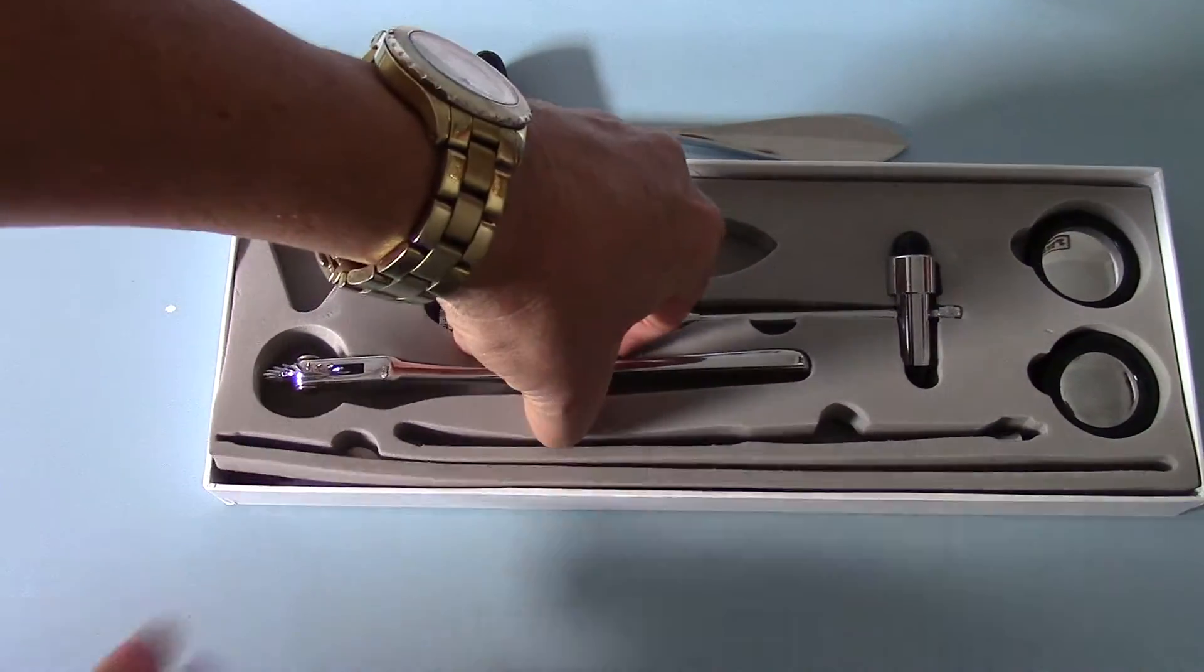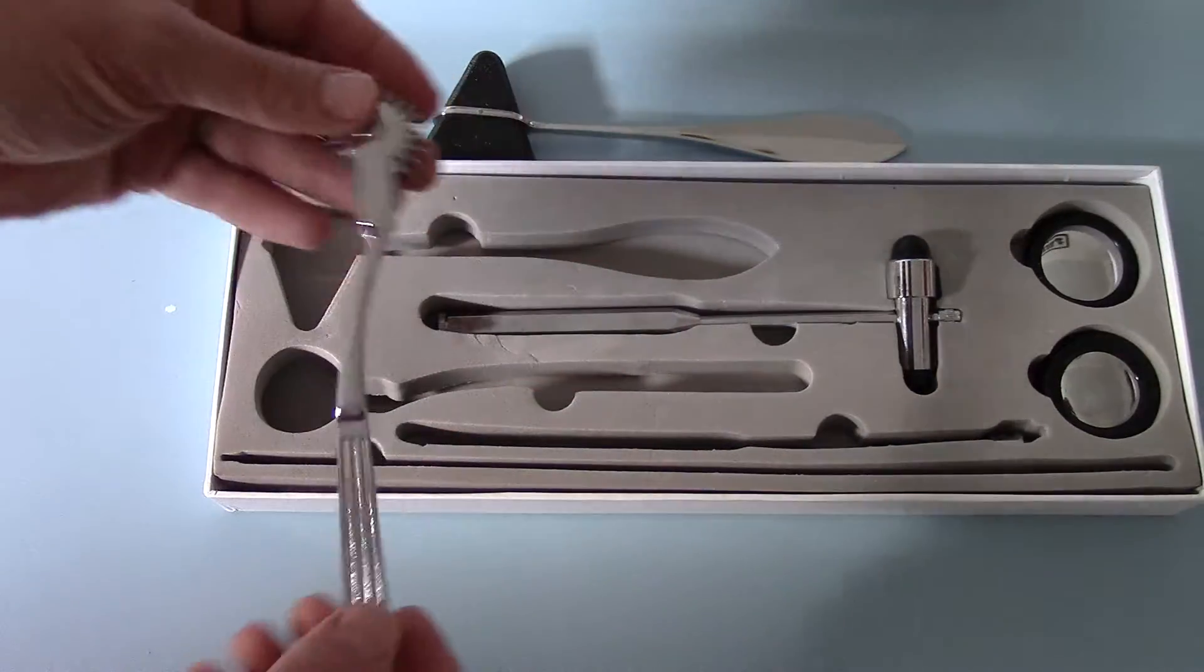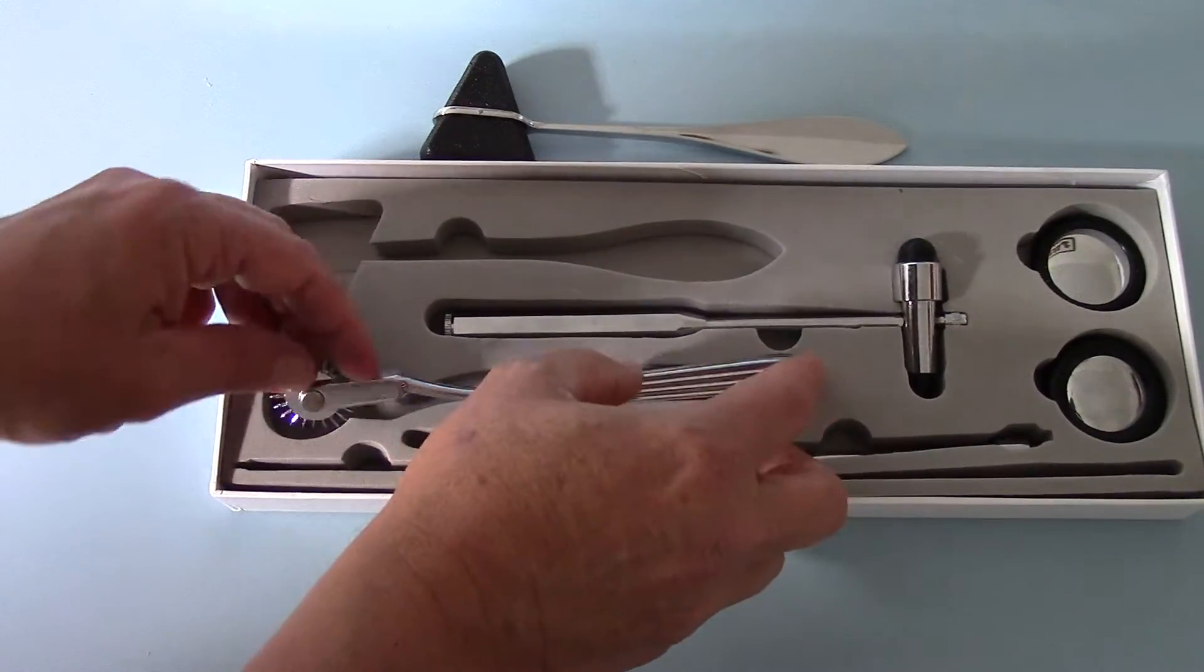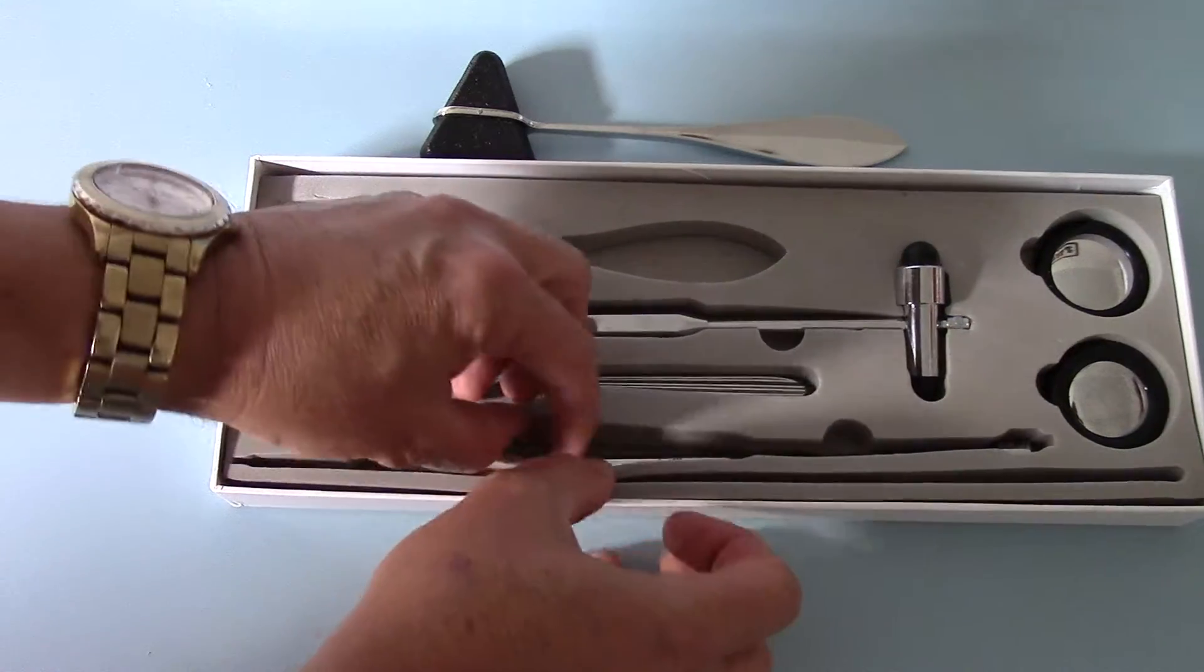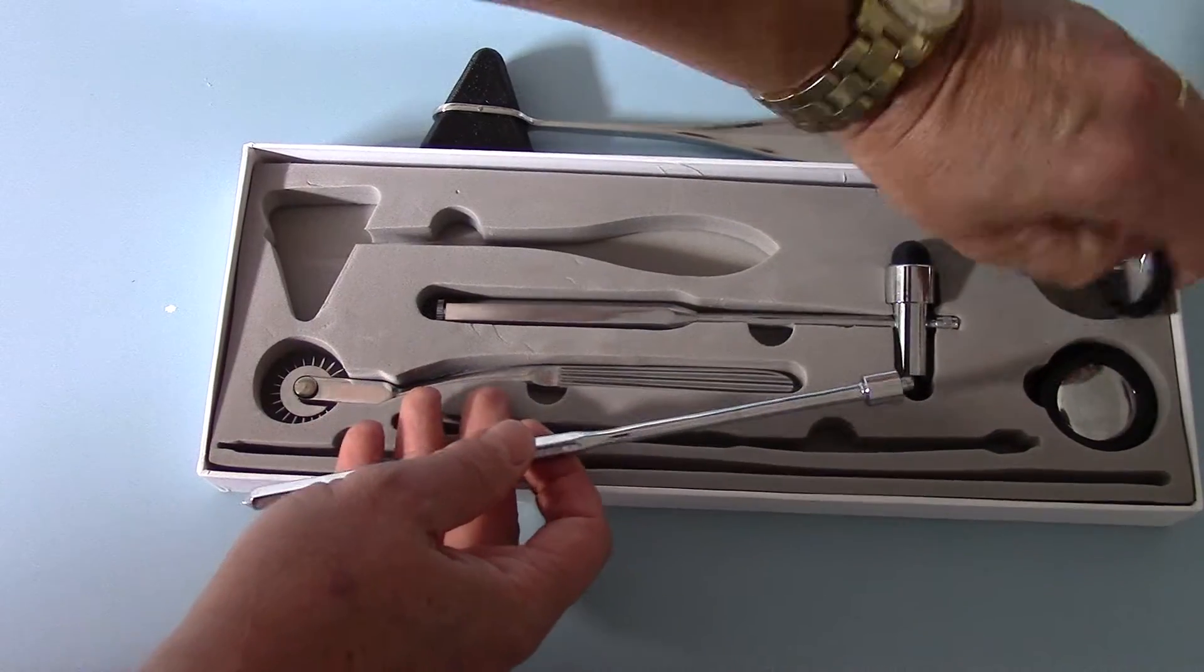We also have a wheel device, here we go, which is for neurological examination.